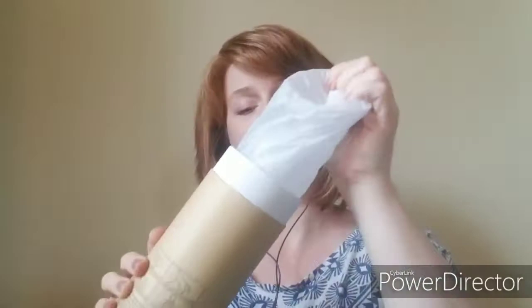Okay, very nice. Comes with some instructions in English and in Spanish — que bueno. Sometimes when baby's on one breast, the other one just starts going to town. This happened with me as a very high producer with my son — I would just be squirting everywhere. This is a TMI video, guys, but we're talking about a breast pump, so you should have been ready for that.